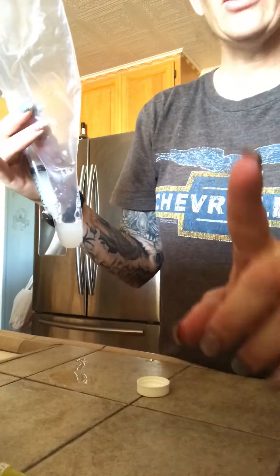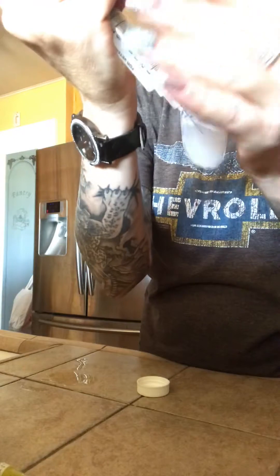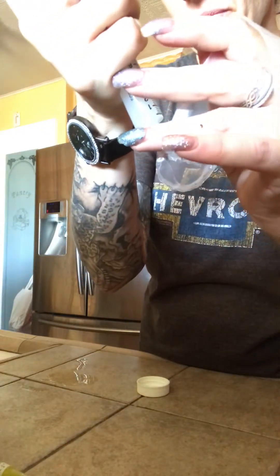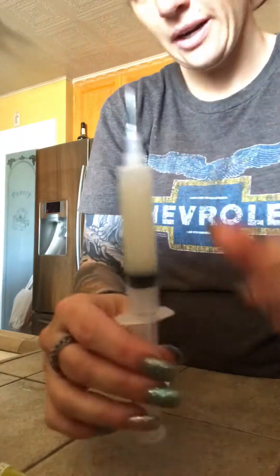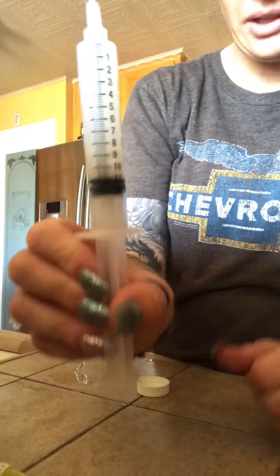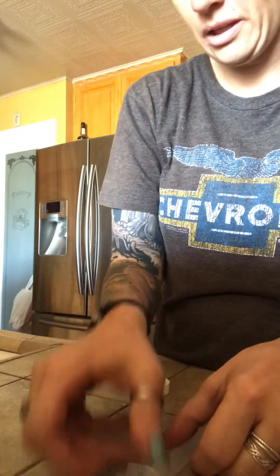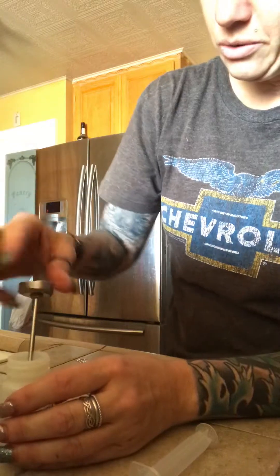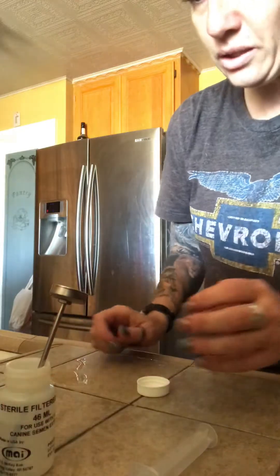Let's see if I can do this without my cat knocking this over, so I just stick it in the bag. Suck up everything — we're at 11 ml. Take that off, sit it down, make sure the tip doesn't hit anything. My sterile thermometer going back in — it was at 100, now let's see what we're at.